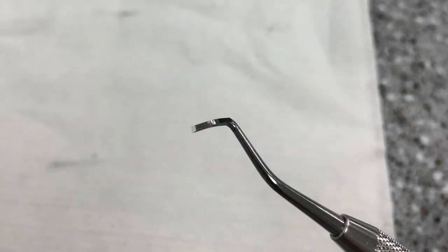When sharpened correctly, your blade will reflect the light with a very distinct cutting area and a very sharp edge to your cutting instrument.